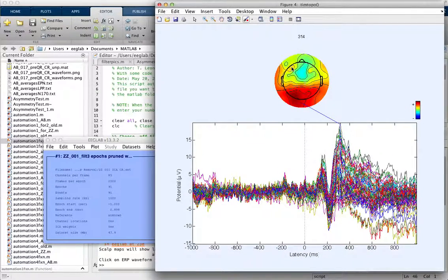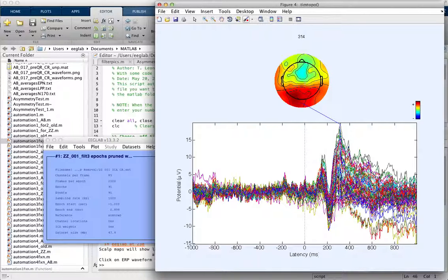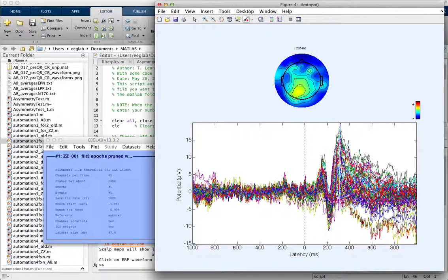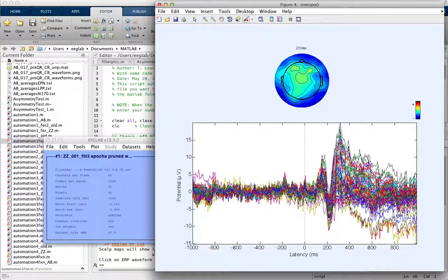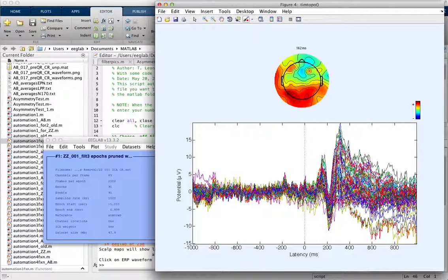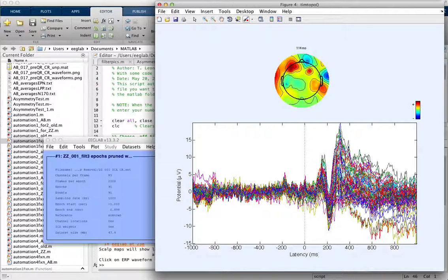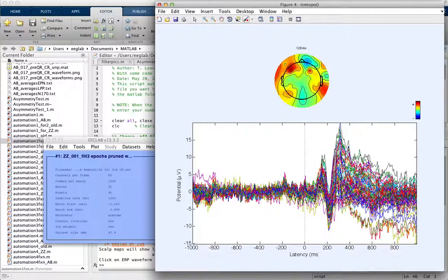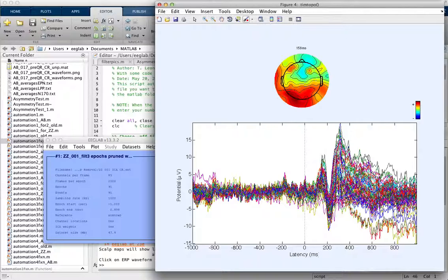As you can see right here and right here, these are two electrodes that are showing up pretty consistently throughout this whole data set. You can see those two spots here and here are always showing up, which means that they don't have a good connection with the scalp, so they're not picking up the data well enough.